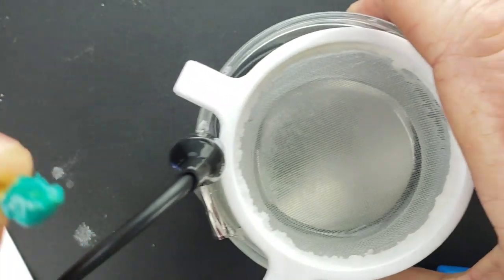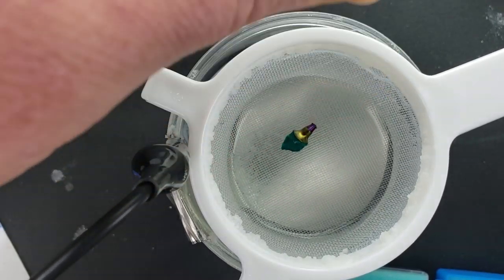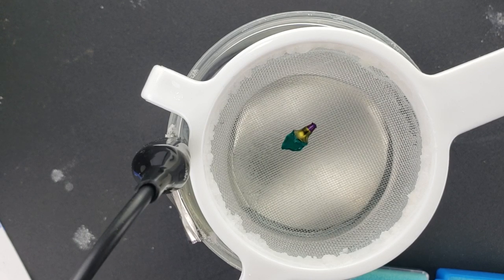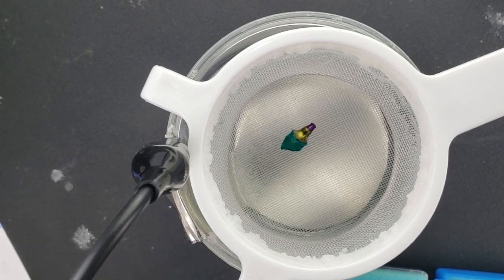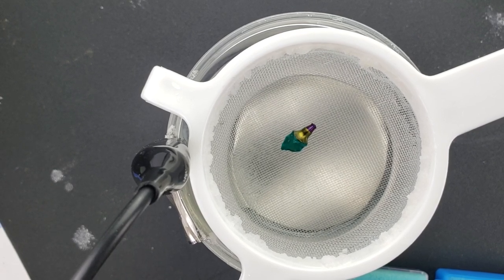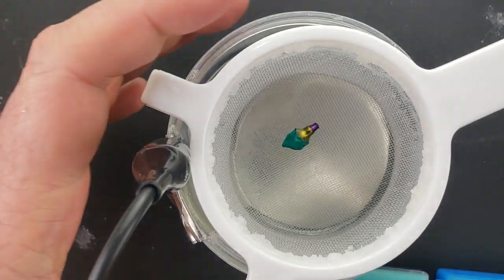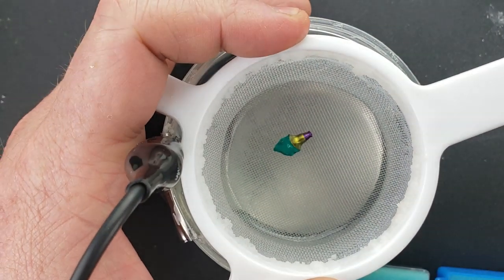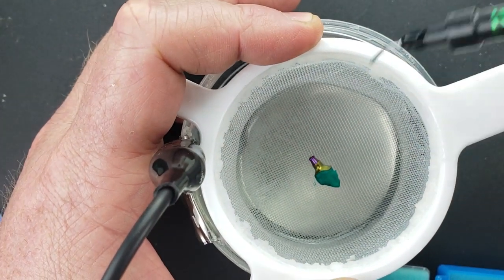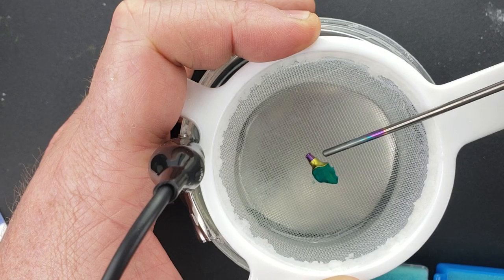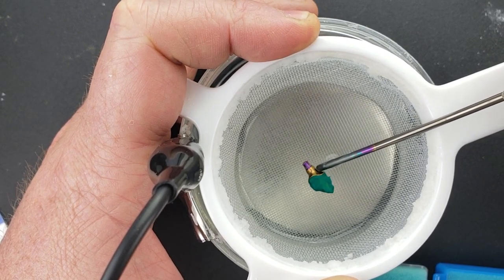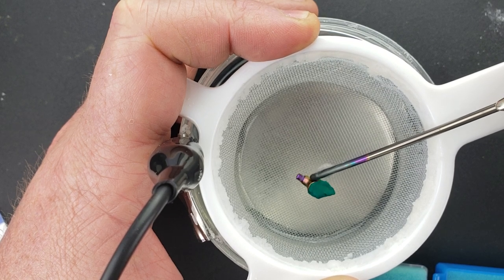Drop it back in. For the pink color, what we're after is in the range of 72 to 75 volts. I'm just turning up the dial for the voltage. There we go, that put it on 75. Poke this down in there a little more so it's fully underneath the solution. Now watch the yellow portion as more voltage is applied. It's going to go through another color change and you see it start to begin to turn gold.